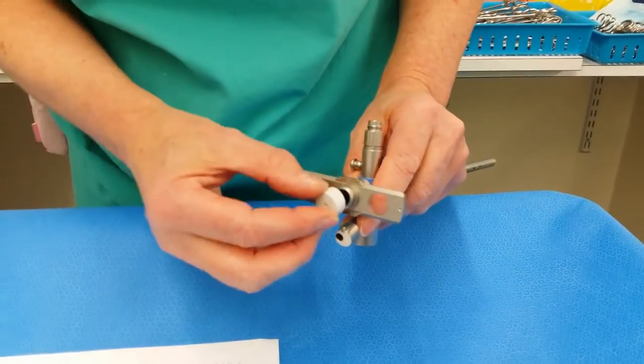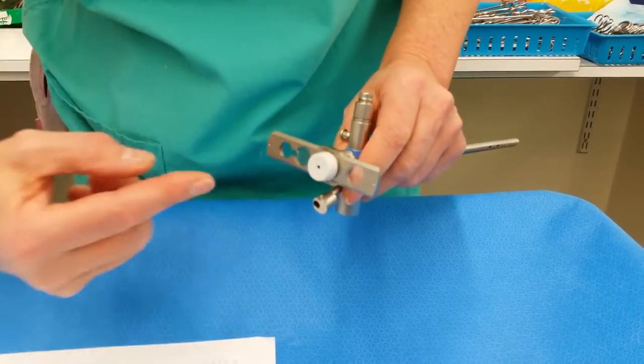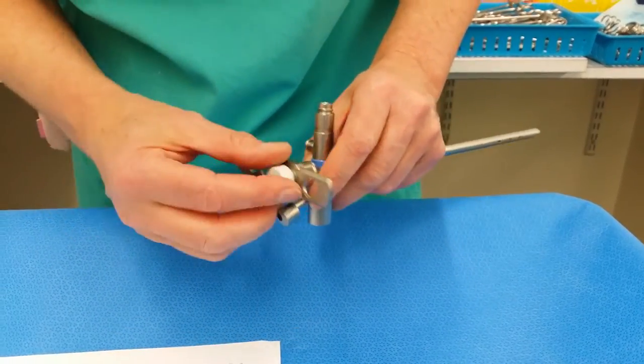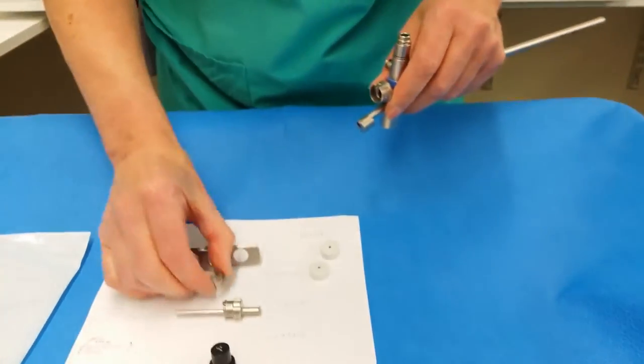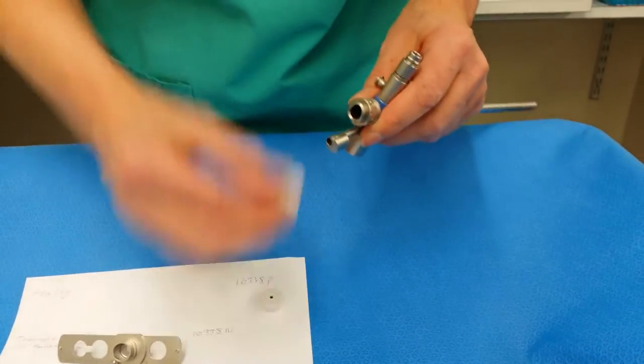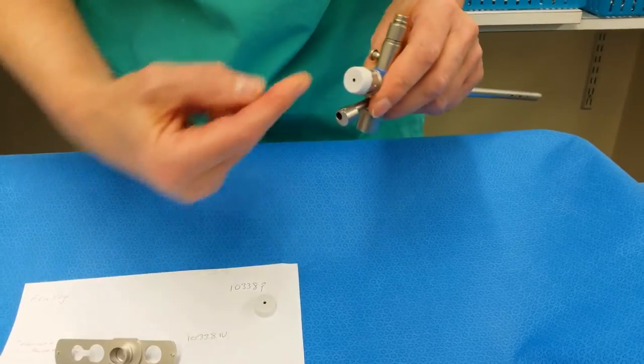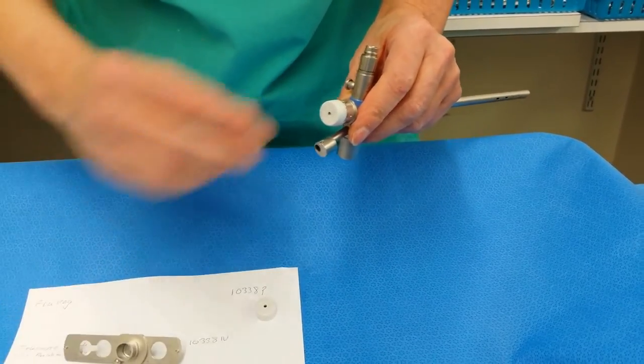This connection here comes with a rubber bond so you can work through it. The other connectors work like this. This is just a single one where you put a rubber bond on and you'll be able to put your biopsy forceps through that.